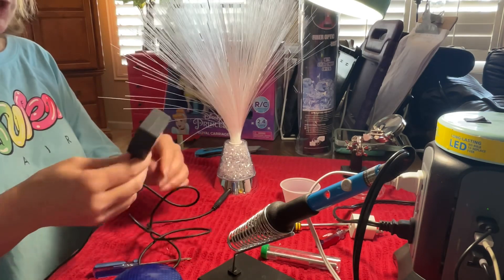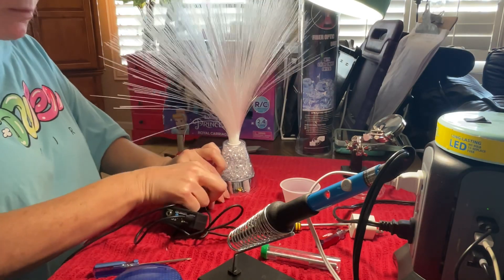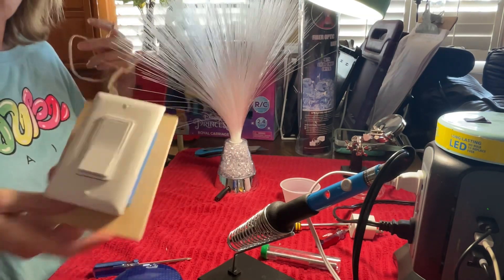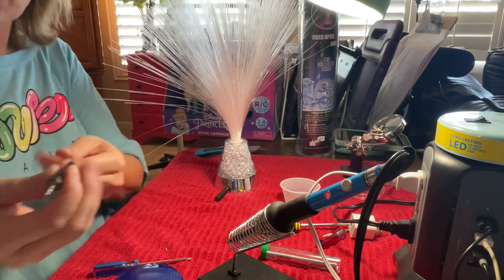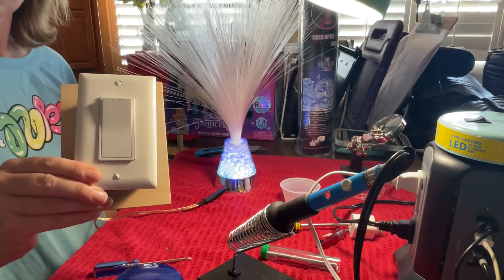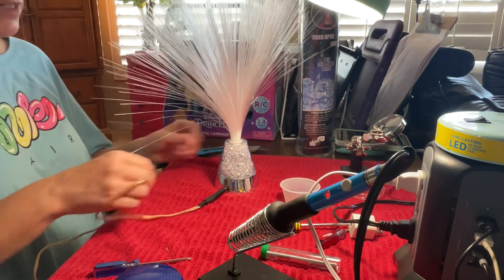You can use these with all switch adaptive toys or other things you might have. The other option is you can make your own toggle switch. This is a light switch we've turned into an adaptive switch that some kids or adults are able to use — we just use stereo wire, put that right inside there, and you flip it on and it stays on, and you flip it off and it turns off. That's how you do the fiber optic light.